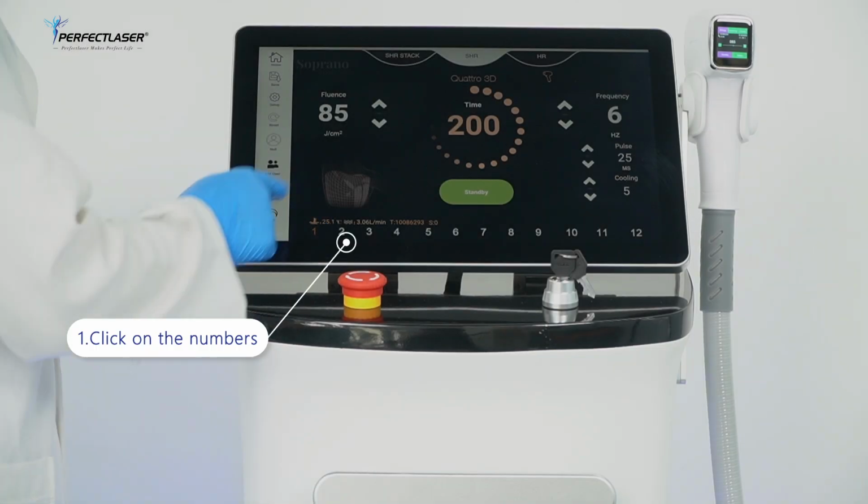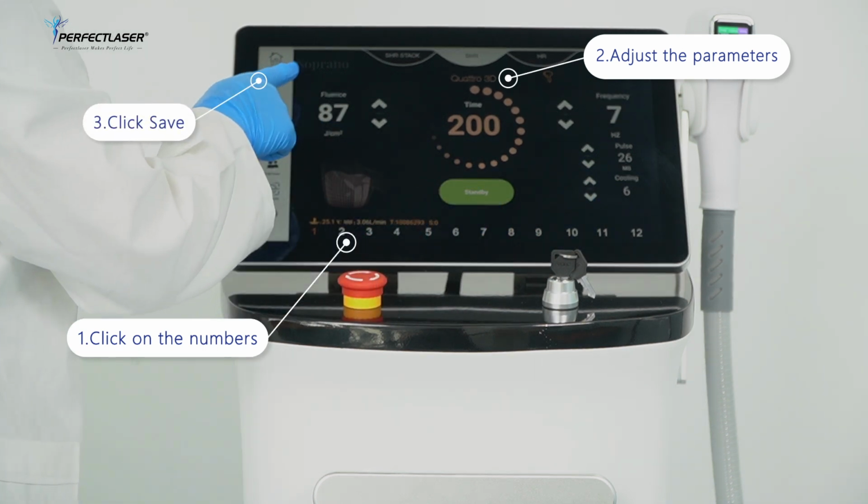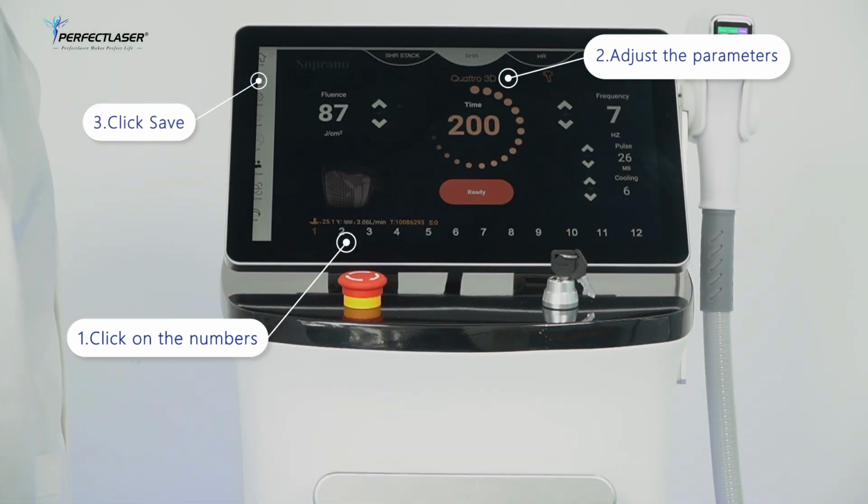Parameter saving. In the process of use, click on the number and it turns orange. At this time you can adjust the treatment parameters. Click Save. The treatment parameters are saved.